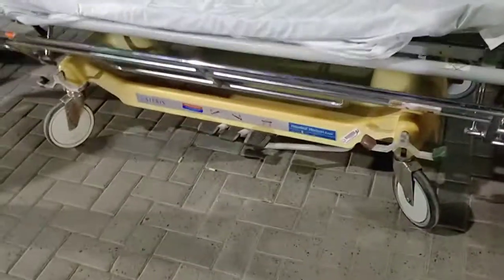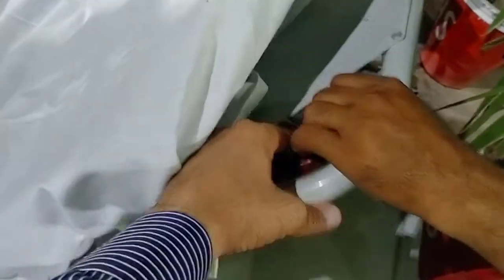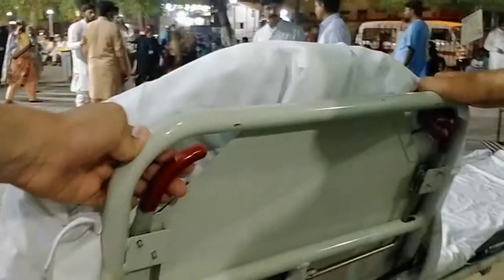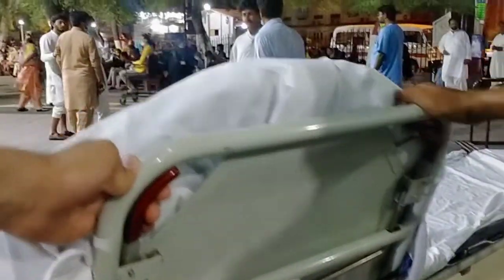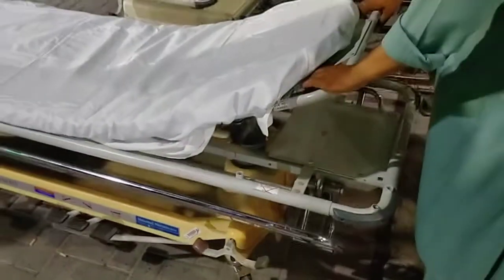This is a sheet and this is the oxygen cylinder — you can keep it here. This is the head end, which has two levers. If you can see these two, you press it back. This one is here — press it back. When you press it back it will come down; if you press it back then it will go up to 20 degrees.